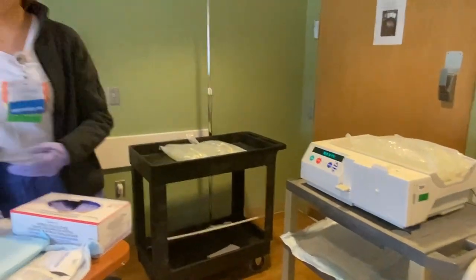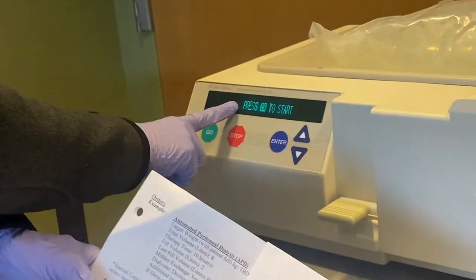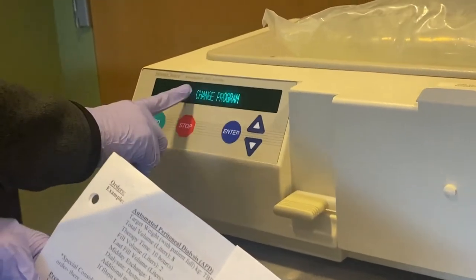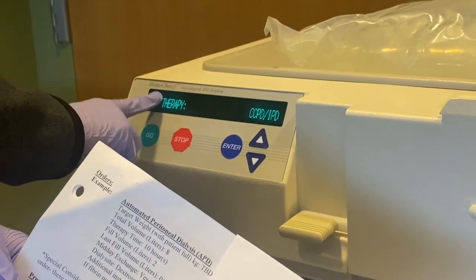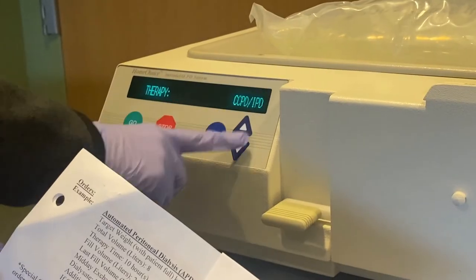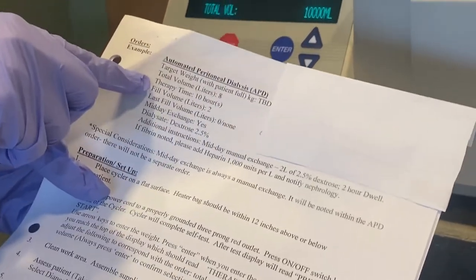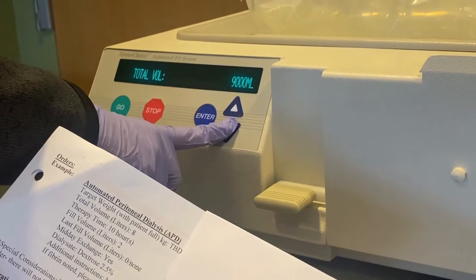From here we're going to review our order. It currently says 'press go to start.' We're going to toggle down, hitting the down arrow to change program. Hit enter — we want our therapy to be CCPD, so that's accurate. Hit the down arrow again. Our total volume listed here is eight liters; this is currently showing ten liters, so we want to click enter and lower the total amount.